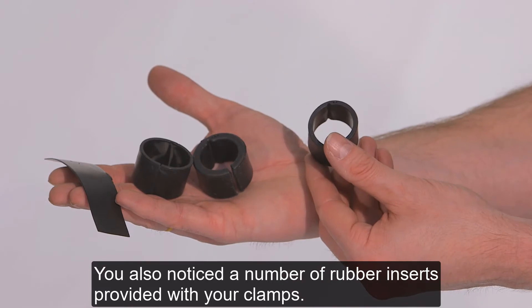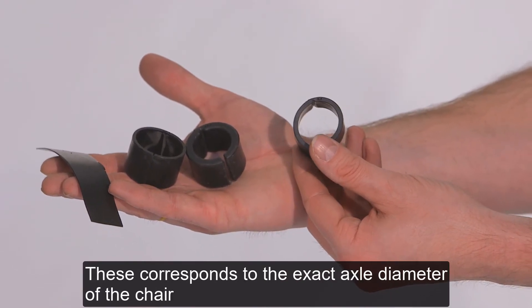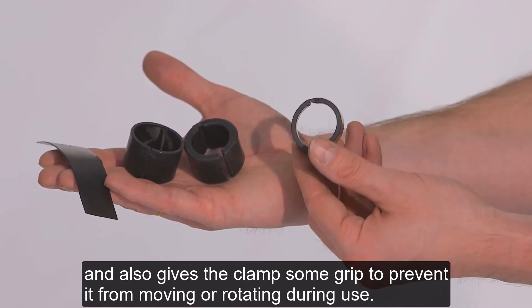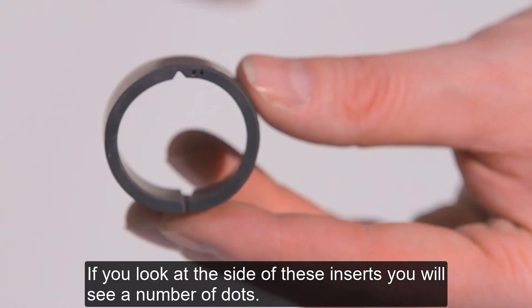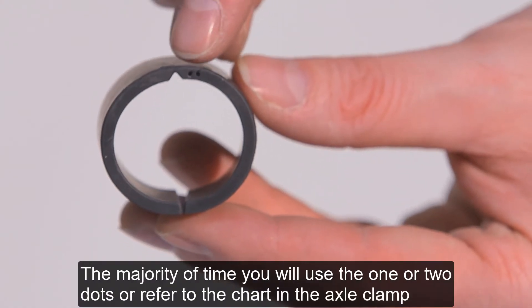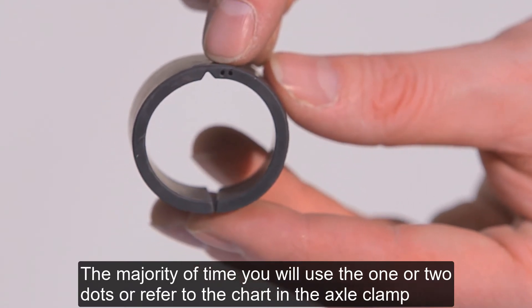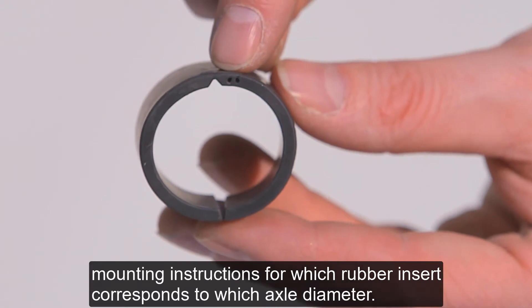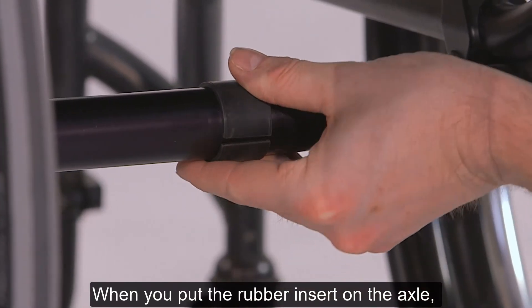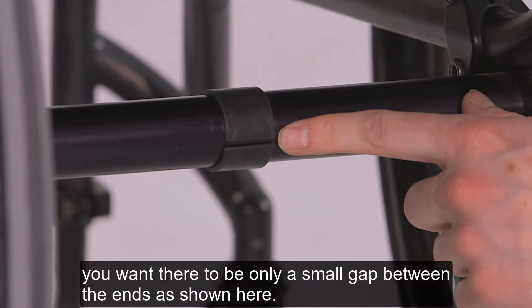You'll also notice a number of rubber inserts provided with your clamps. These correspond to the exact axle diameter of the chair and also give the clamp some grip to prevent it from moving or rotating during use. If you look at the sides of these inserts, you'll see a number of dots. A majority of the time you will use the one or two dots, but refer to the chart in the axle clamp mounting instructions for which rubber insert corresponds to which axle diameter. When you put the rubber insert on the axle, you'll want there to be only a small gap between the ends, as shown here.